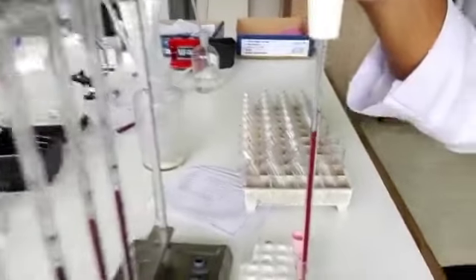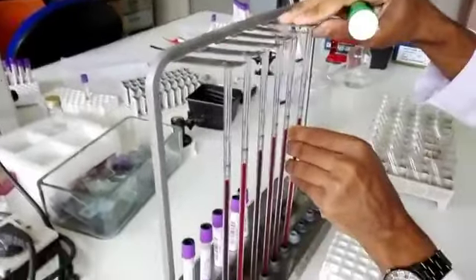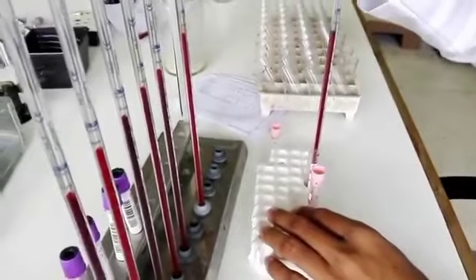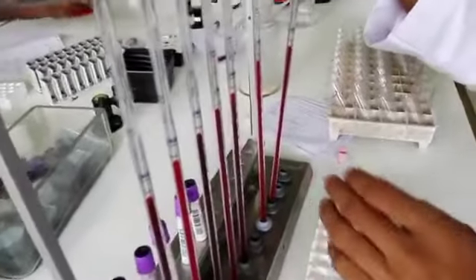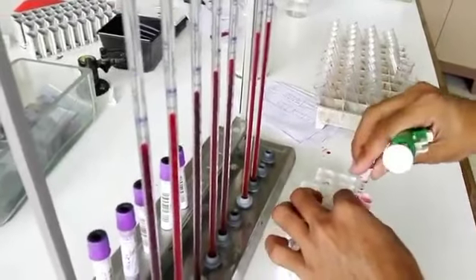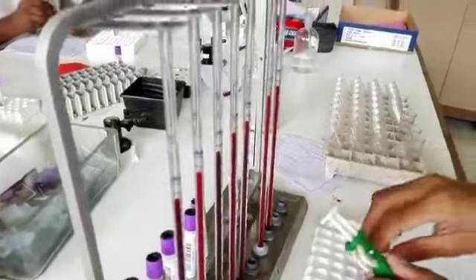So now let's mount this blood sample into the Westergren tube. Then carefully we should fix the tube on the Westergren rack. Here the diluted blood sample should be filled into the Westergren tube up to the 0 mark, and it should be placed at room temperature without disturbing, free from vibration and away from direct sunlight. Okay, now we have mounted the two samples which are collected into the trisodium citrate anticoagulated tube directly.